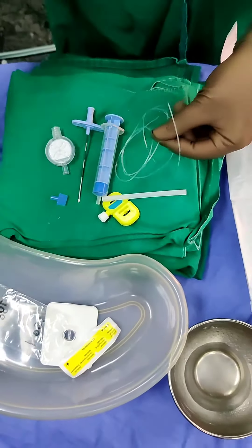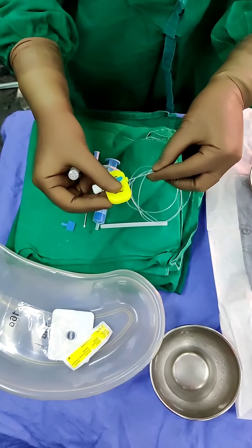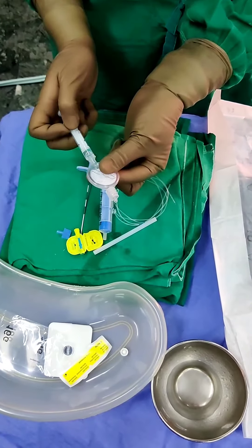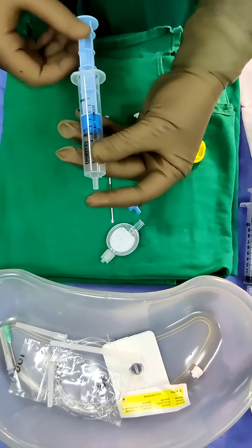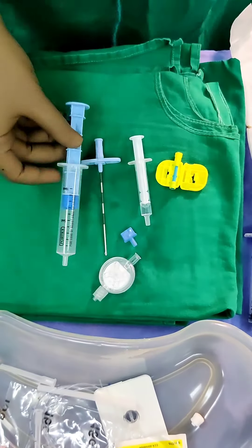The catheter should be flushed with saline to confirm its patency before insertion. The catheter has 3 holes distally facing in 3 different directions, and as we inject the saline we can see the saline pouring out through all 3 holes. Distally, the catheter is connected to a yellow colored connector. An epidural filter device is also available in the set, which prevents transmission of particulate matter or infection into the epidural space, and that should also be flushed with saline. The loss of resistance syringe is a 10 ml low friction plastic syringe specifically designed to facilitate successful location of the epidural space.